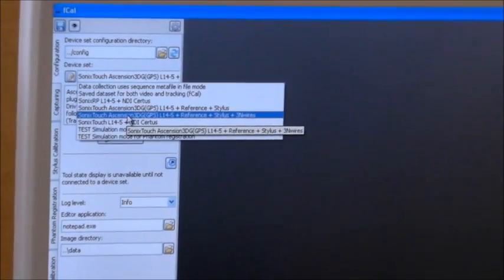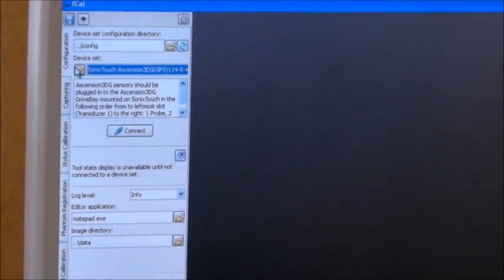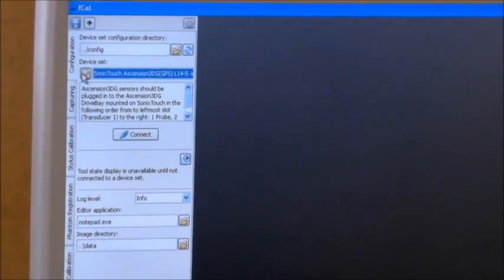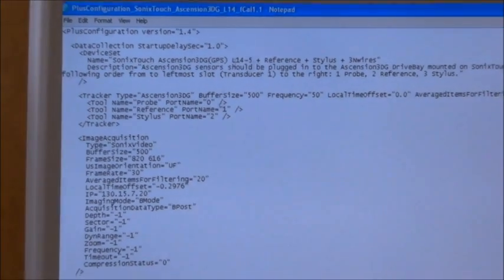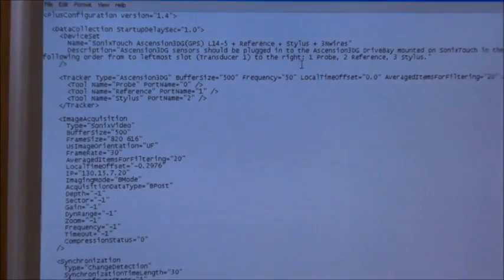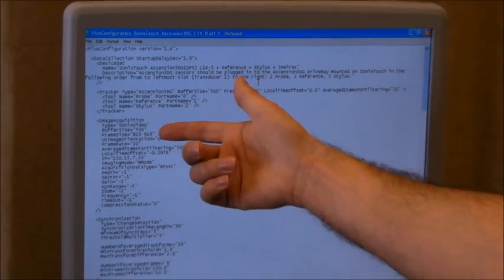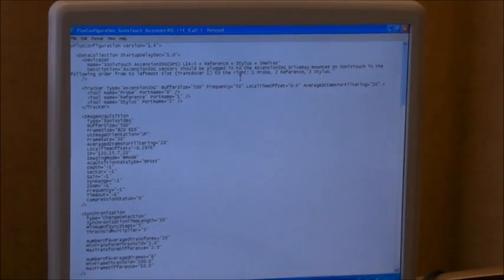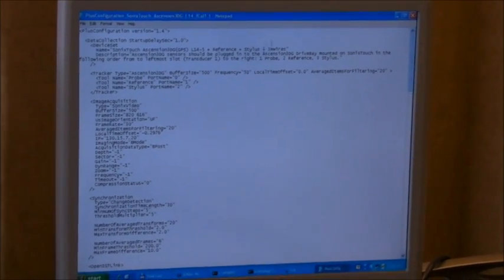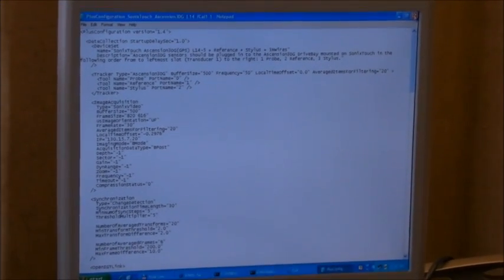If you have to edit this file, you can just click this button, edit whatever you want, the image acquisition type, the tracking, etc.